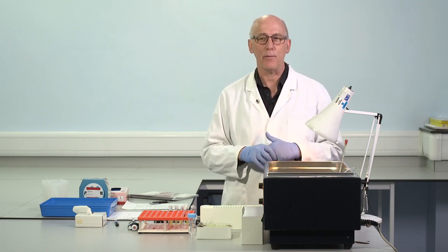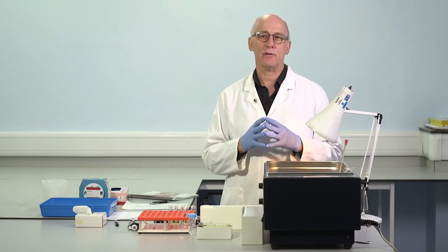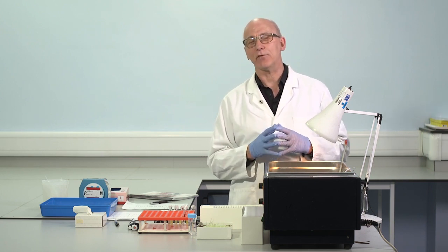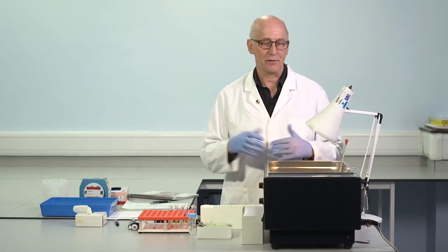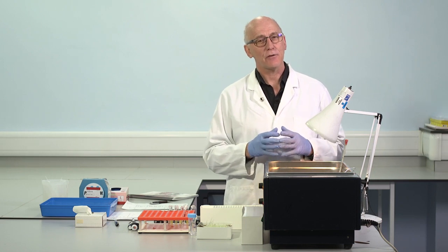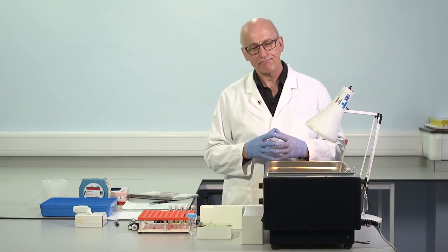I think 2 levels is adequate. But there should be levels with different results. We need a normal control, and that tells us that the method is under control in an important area, that we're able to obtain good results in normal samples. But of course, some of the key samples that we'll be testing are patients with abnormalities. We're interested in particular, of course, in bleeding disorders. So we want to be confident that our method is also working well when we're dealing with prolonged APTTs. So I think the second level of control should be effectively an abnormal in a critical area. So we've got some degree of prolongation.